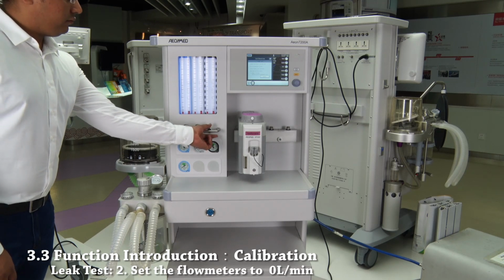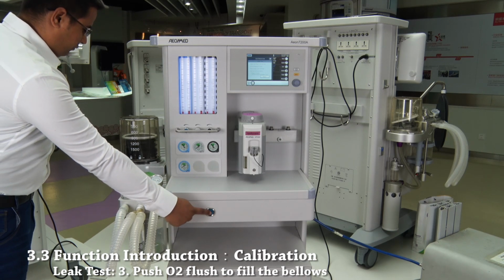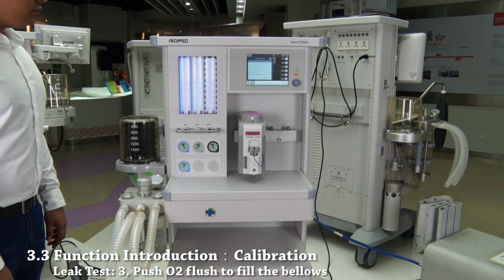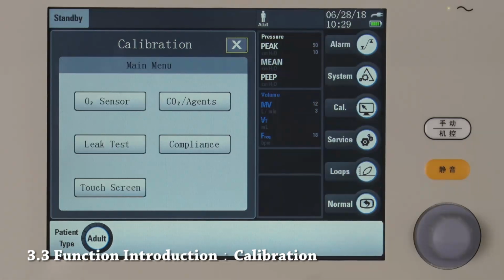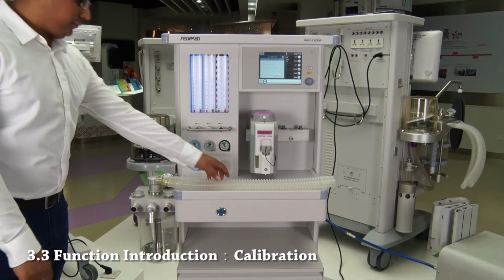Second, set all flow meters to 0 liter per minute. Third, push O2 flush button to fill the bellows. Press start. When leak test succeed is displayed, calibration is finished. Touch here for compliance test.